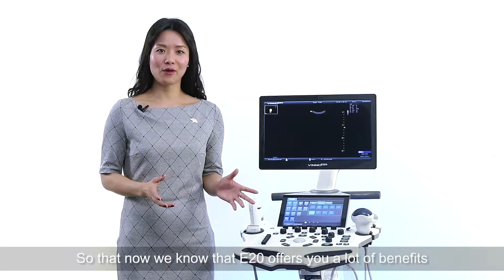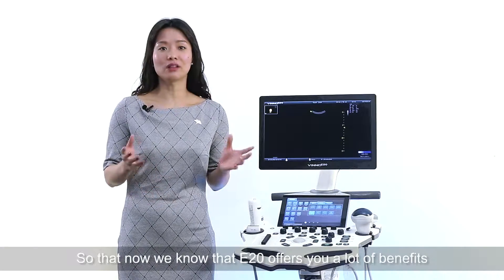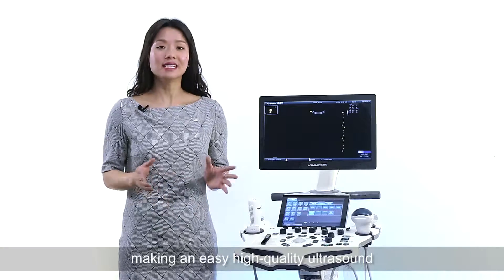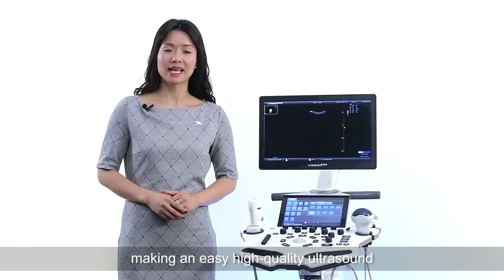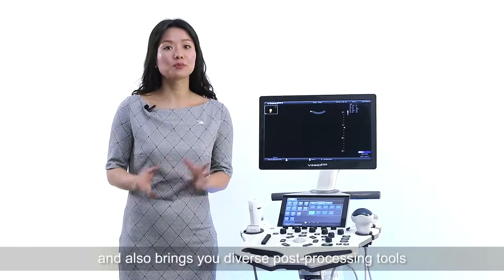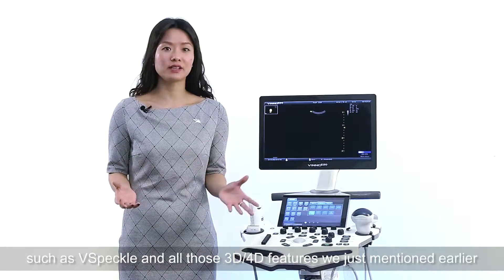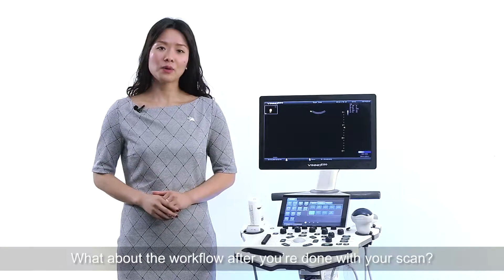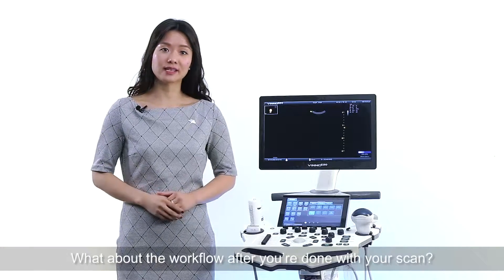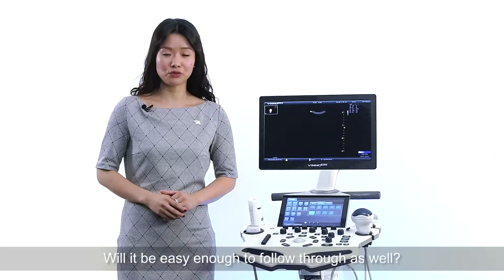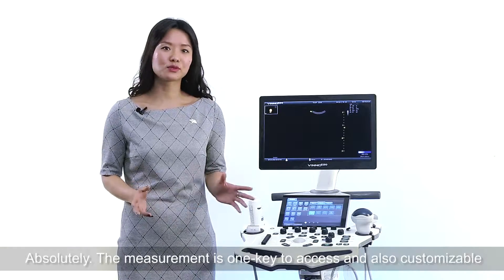So now we know that E20 offers you a lot of benefits, making easy, high-quality ultrasound, and also brings you diverse post-processing tools such as V-speckle and all those 3D/4D features we just mentioned earlier. What about the workflow after you're done with your scan? Will it be easy enough to follow through as well? Absolutely!